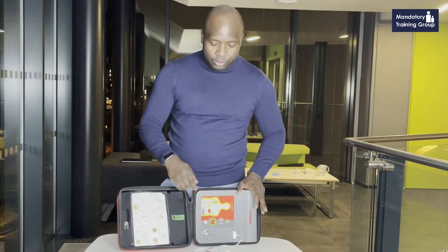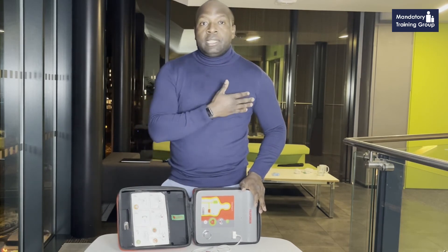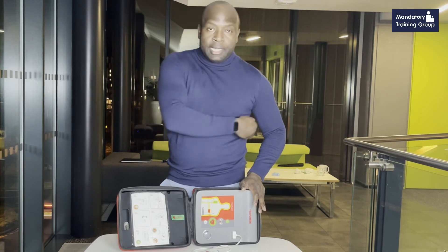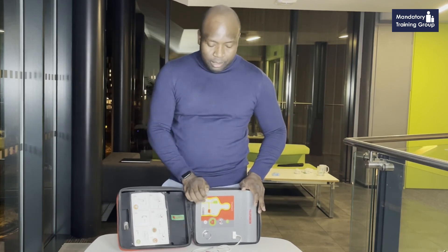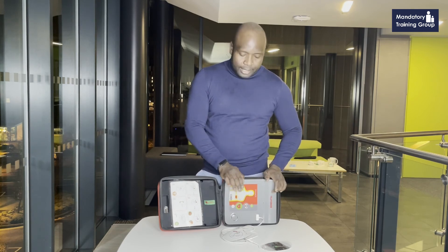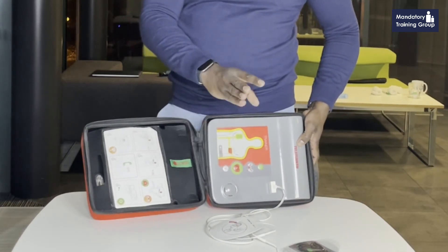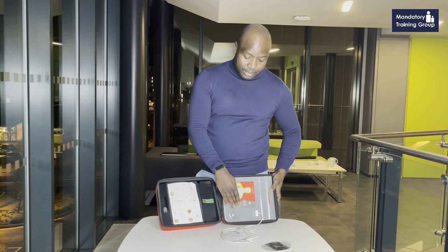The key thing with an AED is to cut the seal and switch it on. Put the pads on the right side of the chest and under the armpit on the other side, with the heart in between. Once you've placed the pads, the AED will recognize they are on and tell you what to do. If the person is in a shockable rhythm — either VF or pulseless VT — the AED will tell you to shock, and this button starts flashing to indicate it's ready.